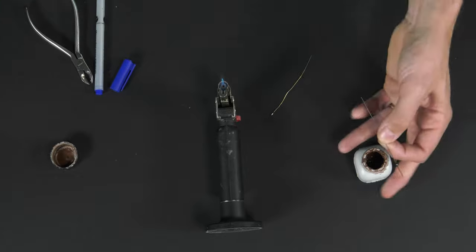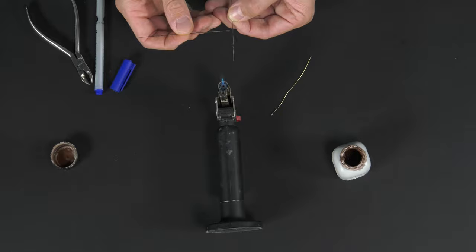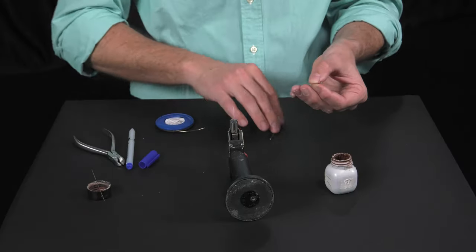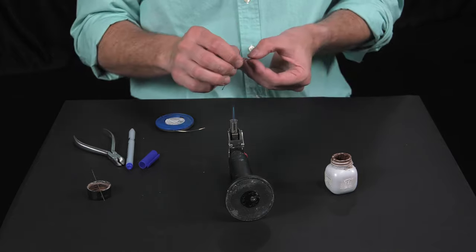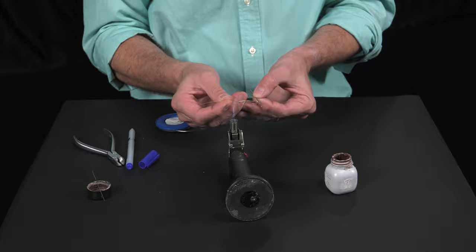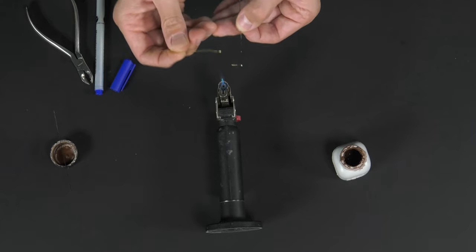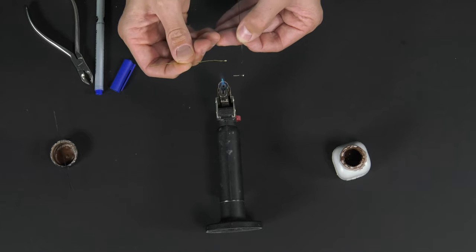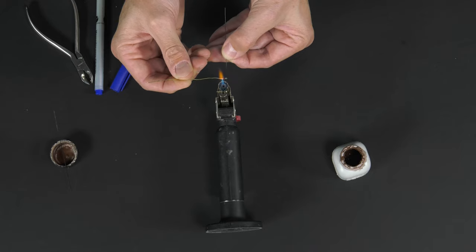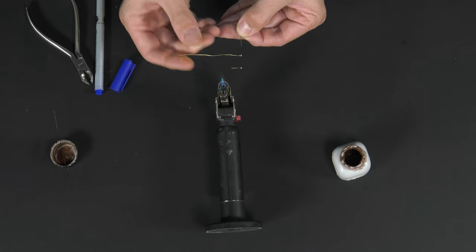We solder the second hook. We always apply flux to the wire at the desired point. We take the brass wire segment with the silver solder, heat it, heating only the brass wire section. By heating it, we melt the silver solder which will bond to the wire. The flame never contacts the steel wire.